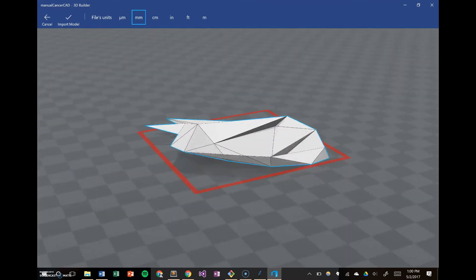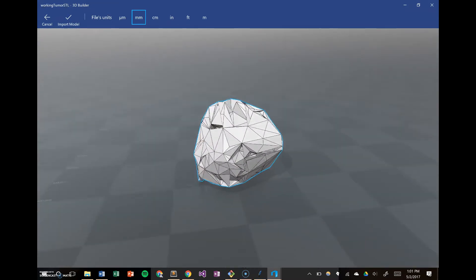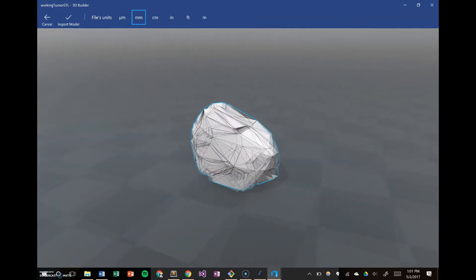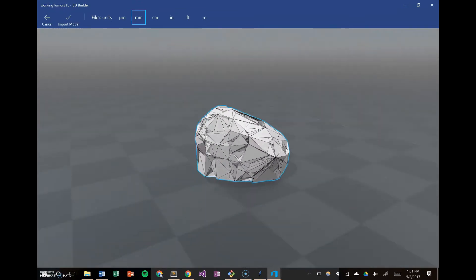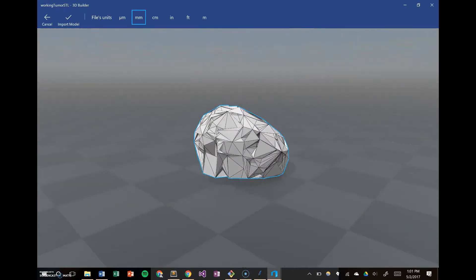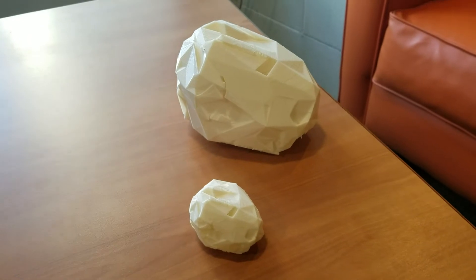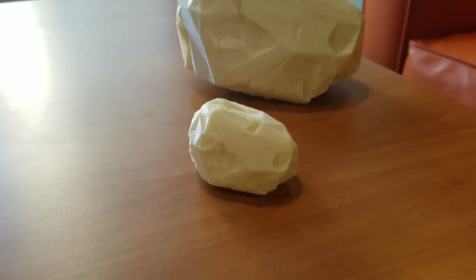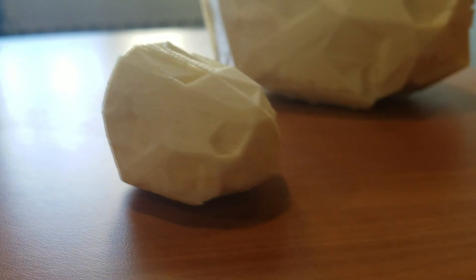And this is only from two image slices, so when you look at it with all of the image slices, maybe 50 or 60, the mesh that you're generating is very useful. When you 3D print it, it's life-size. You can feel it. You can look at it and really understand what's inside the patient's body, and that is useful.